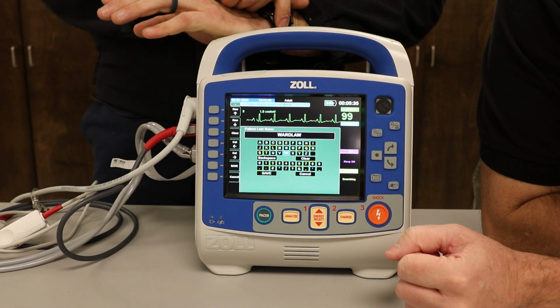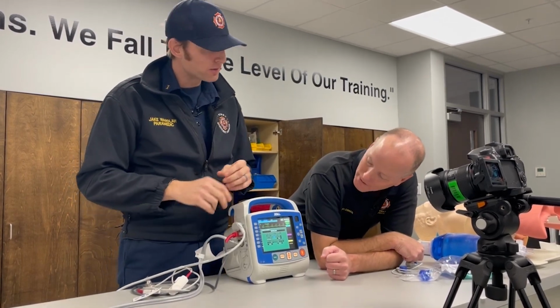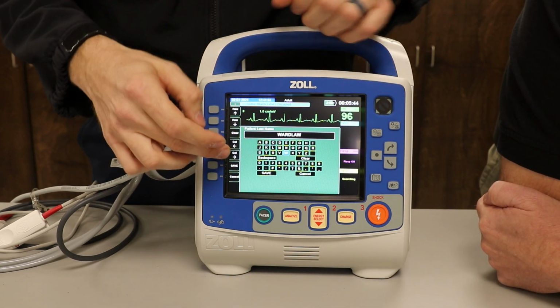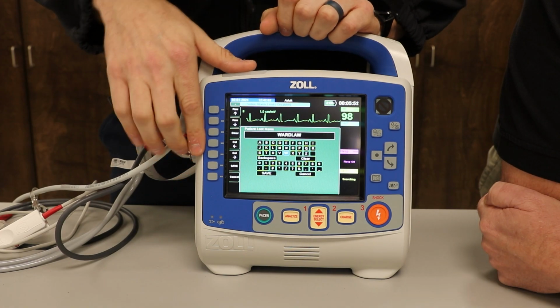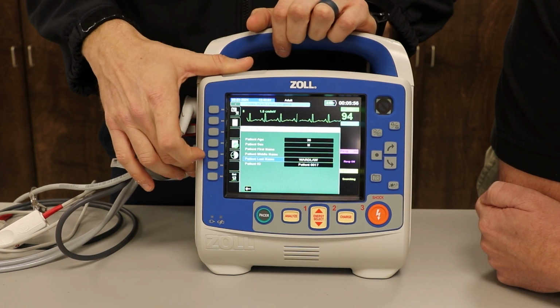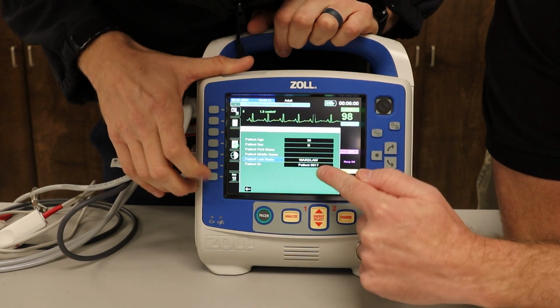So now we have to save it, right? We actually have to go back to where we can hit the camera button, which is the capture of that 12 lead. There's two ways you can save it. You can either manipulate it like you did, David, through this text box and get to that save button at the bottom. The easiest way: at the bottom it says save. It's the second button from the bottom. You hit it, it saves that information. Now we're back here. Yep, there it is.